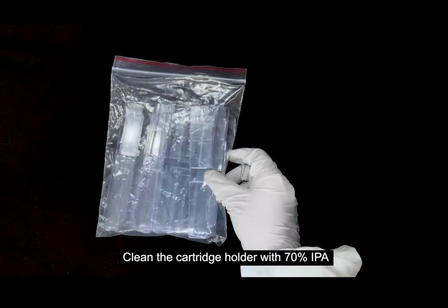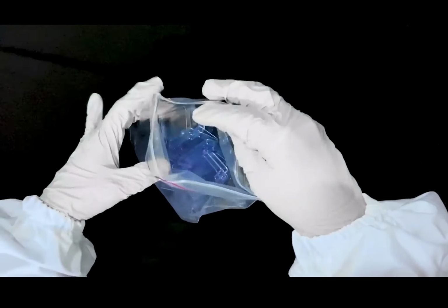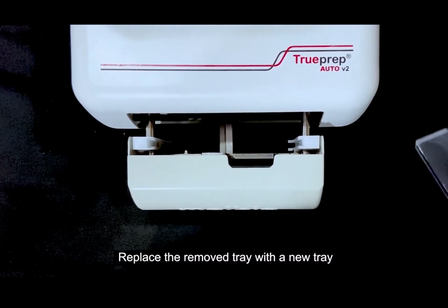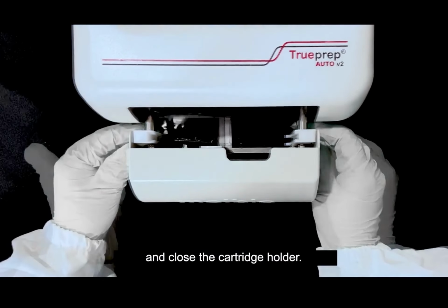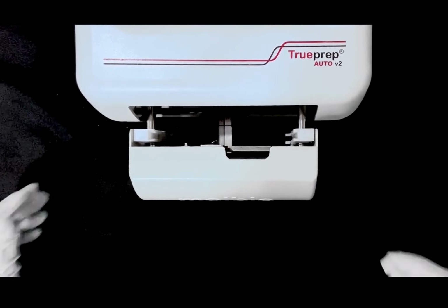Then take out a new spill tray. Then you can insert it in this particular orientation. It will be like a small bench inside where it goes and fits. And then after that, you can start using the machine for the test.